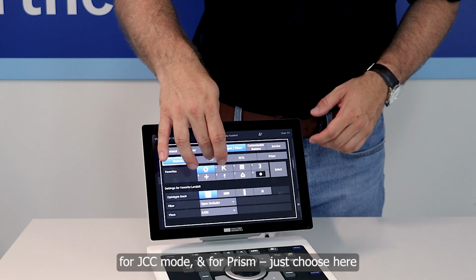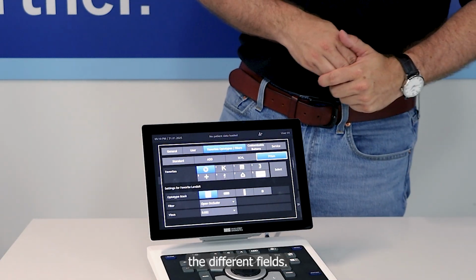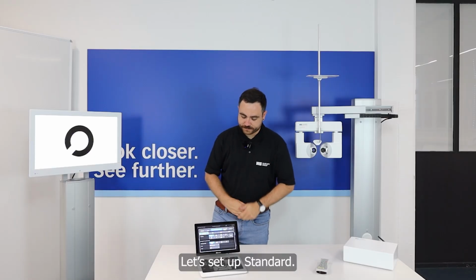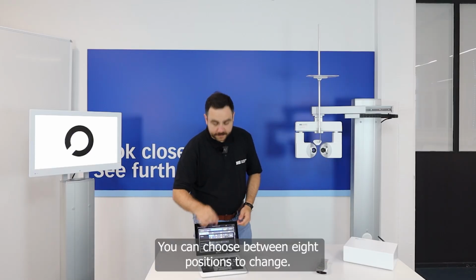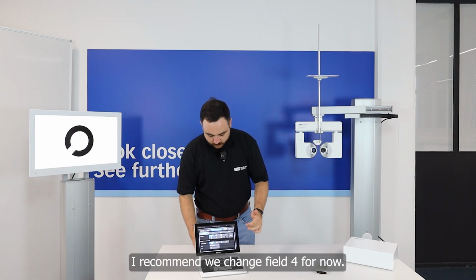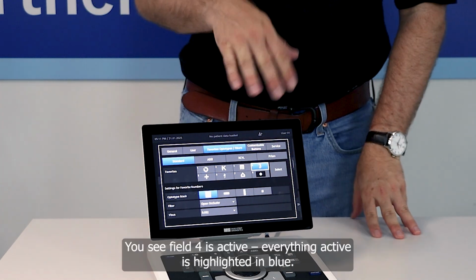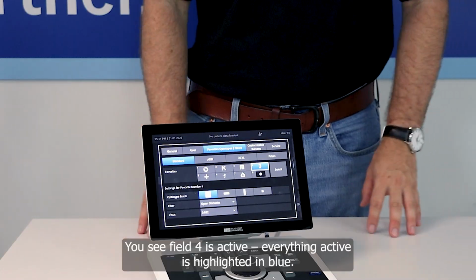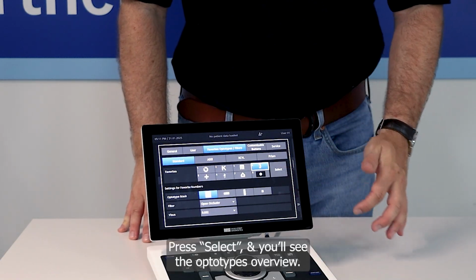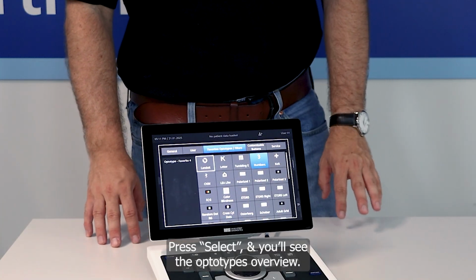You just have to choose here the different fields. So let's set up for standard. You can choose now here between these 8 positions, which one you want to change. Now I would recommend, let's change field 4. Now you see field 4 is activated because everything which is activated is still blue. Press on select and you will see the optotypes overview will open.